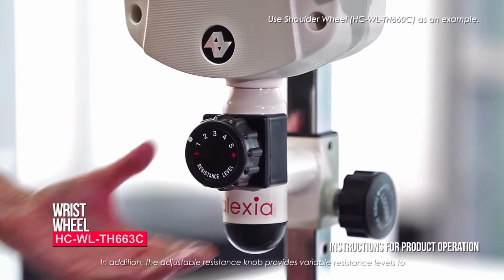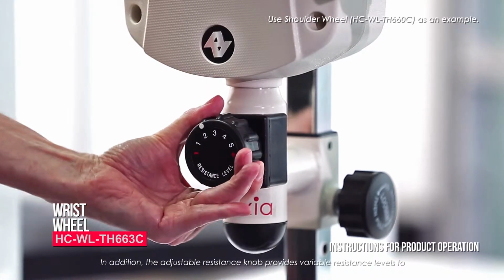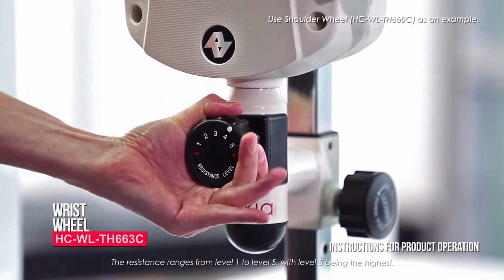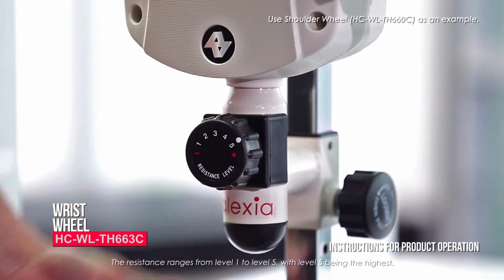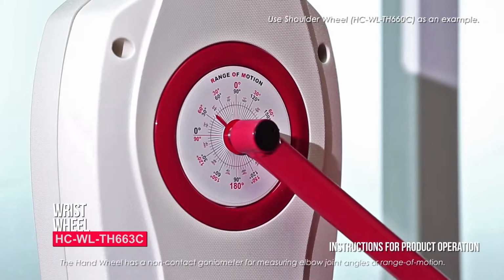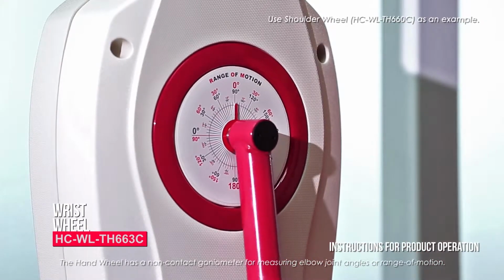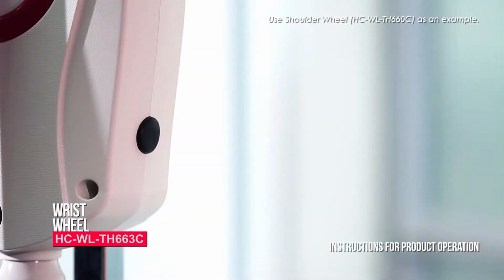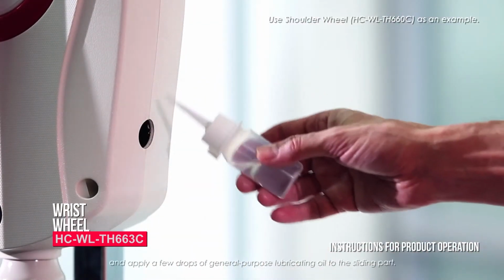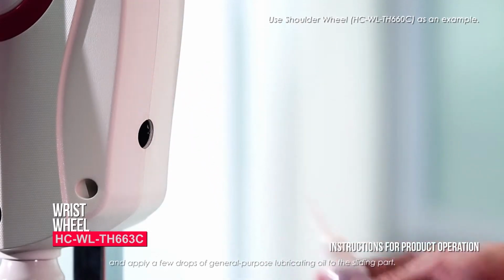In addition, the adjustable resistance knob provides variable resistance levels to accommodate different physical conditions. The resistance ranges from level 1 to level 5, with level 5 being the highest. The hand wheel has a non-contact goniometer for measuring elbow joint angles and range of motion. If the resistance is abnormal, open the black plastic cover and apply a few drops of general-purpose lubricating oil to the sliding part.